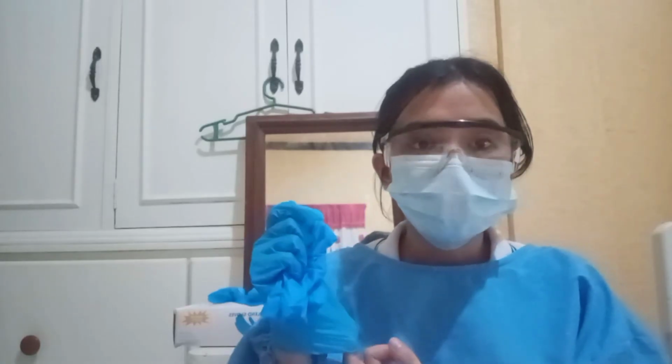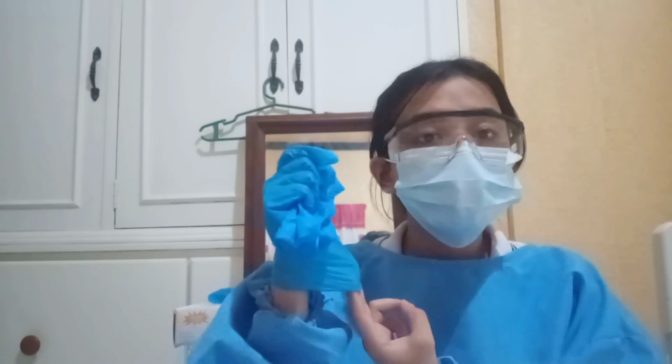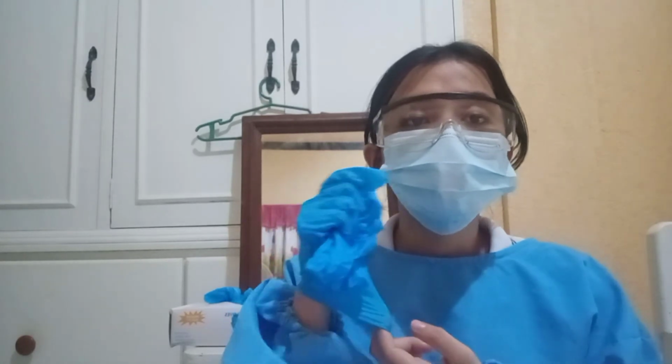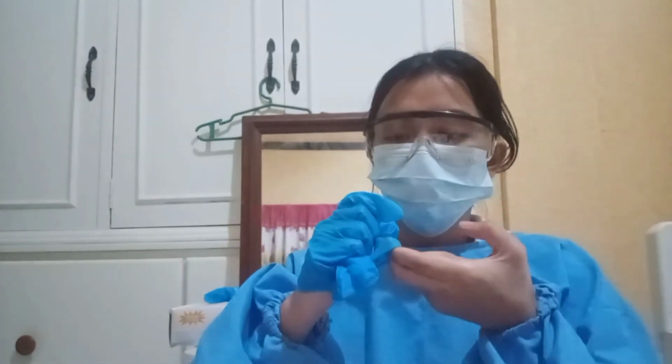Touching the outside of the second soiled glove with your bare hands is thus avoided. Pull the second glove off by turning it inside out, with the first glove inside the second glove. Using bare hands, continue to remove the gloves, which are now inside out. Now I will dispose of them in a refuse container. After that, I will perform hand hygiene with an alcohol-based rub because contact with microorganisms may occur in removing PPE.